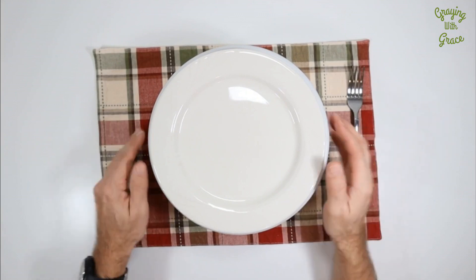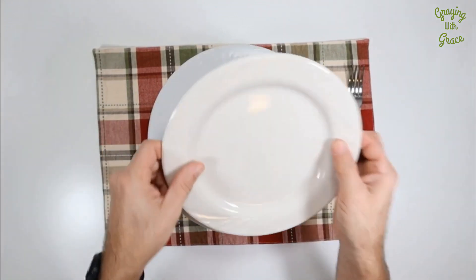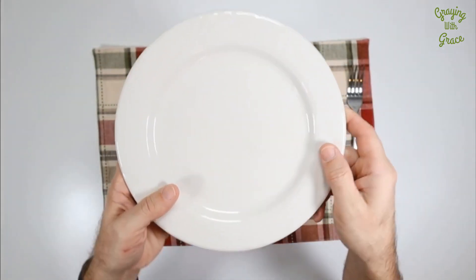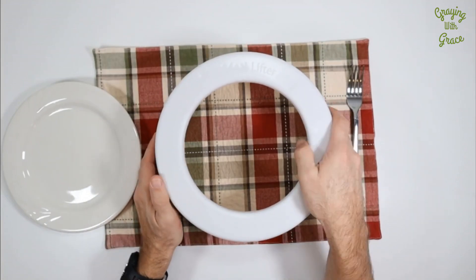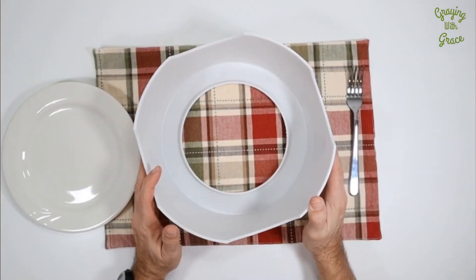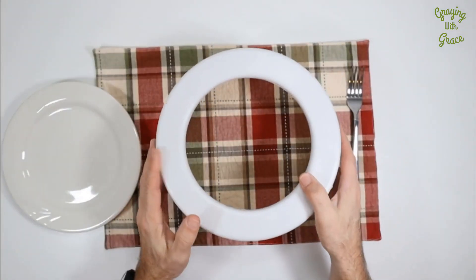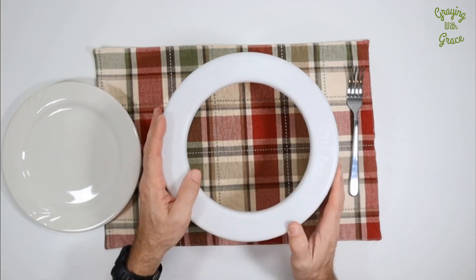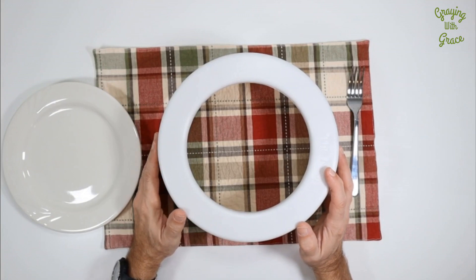So I just wanted to show this to you and demonstrate how that works. A few other observations: make sure you get a plate that's got some depth to it — you want a nine inch, smaller dinner plate. The device itself is plastic, so it can easily be wiped down to keep clean. Also, my recommendation is to put it on some kind of placemat that helps stabilize the base and keeps it from moving around on the table if you've got a slicker surface.